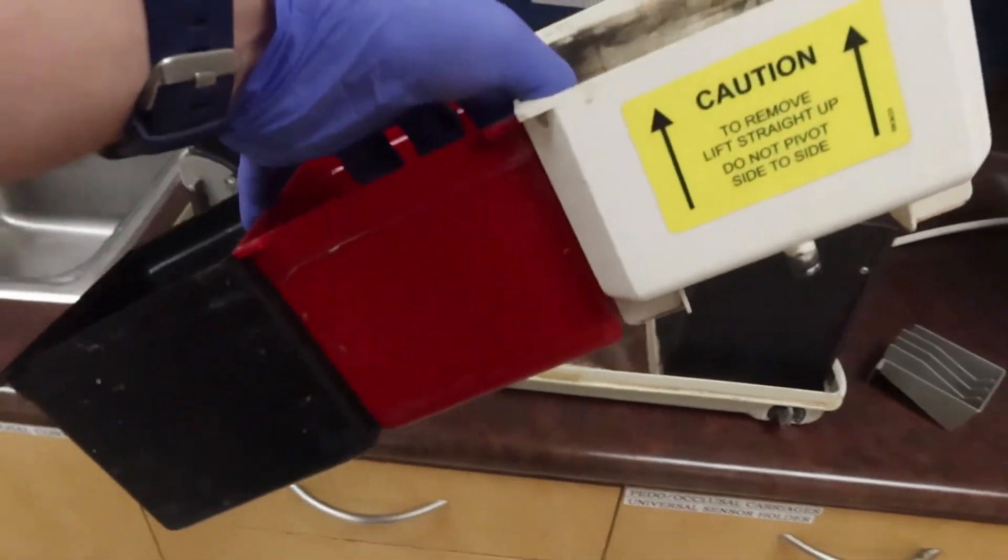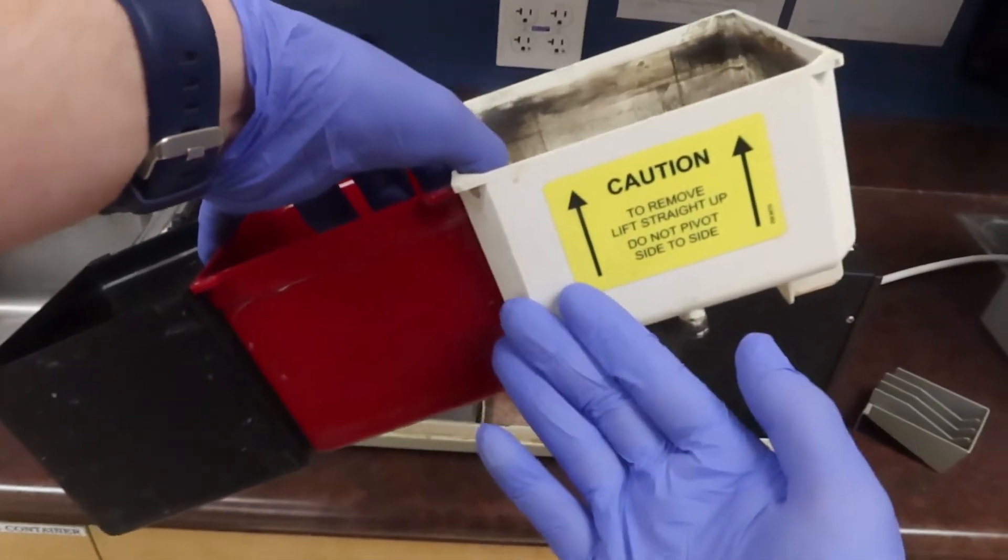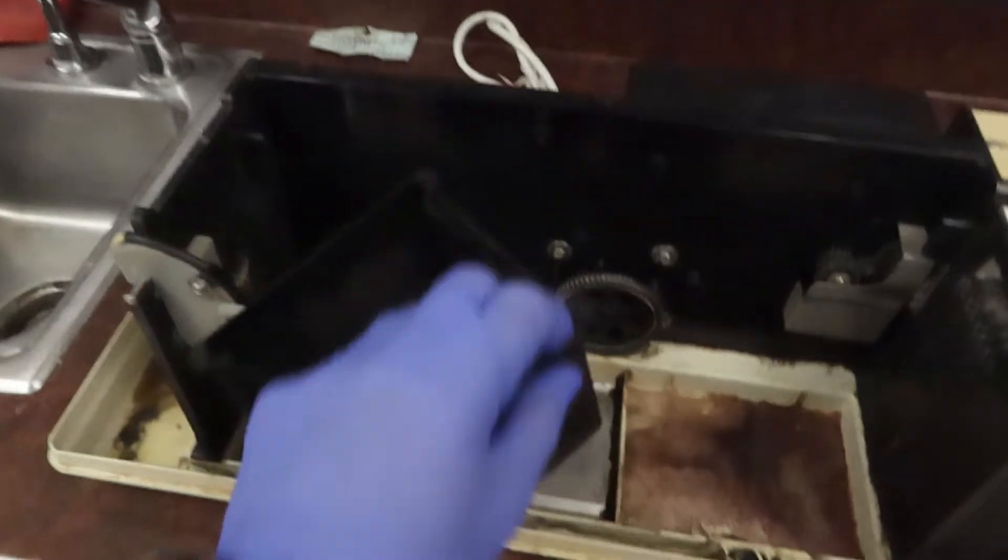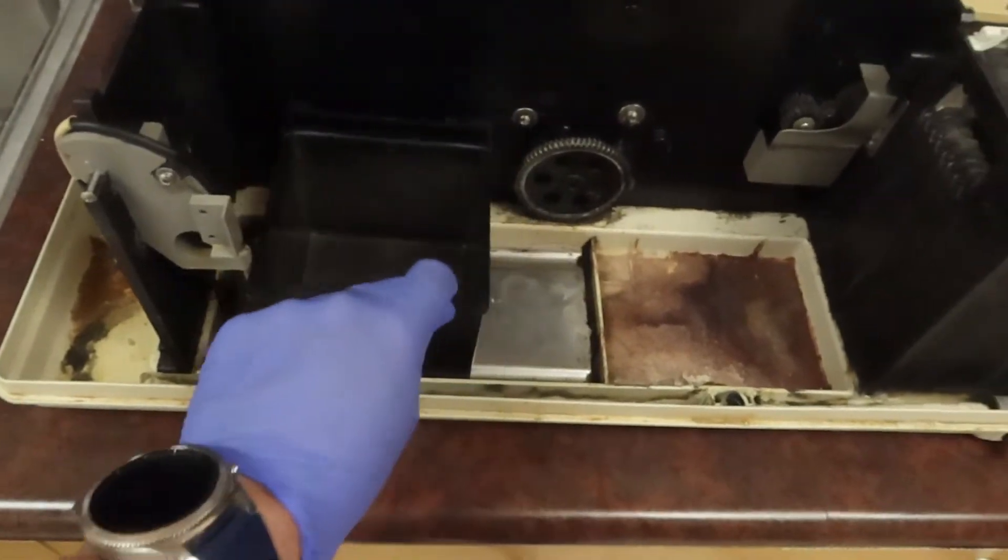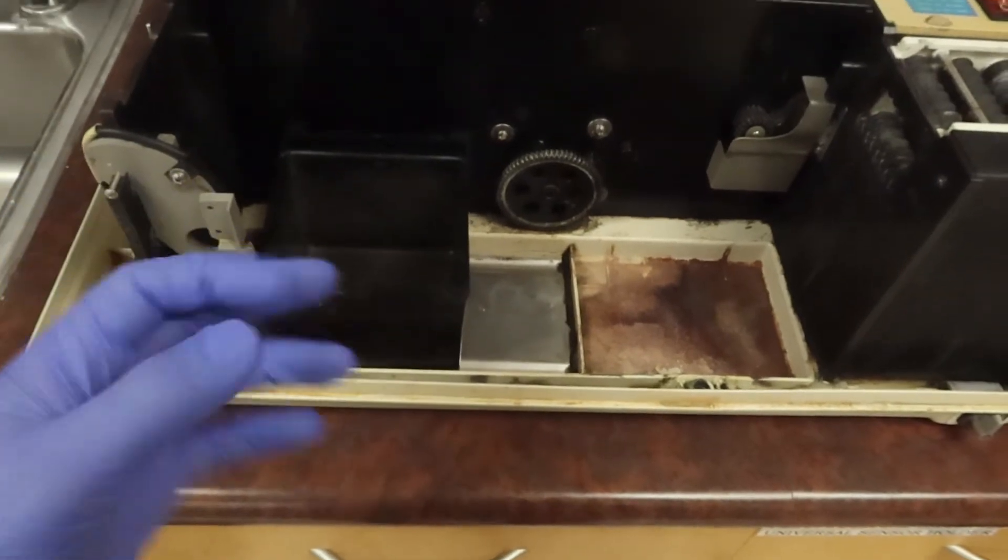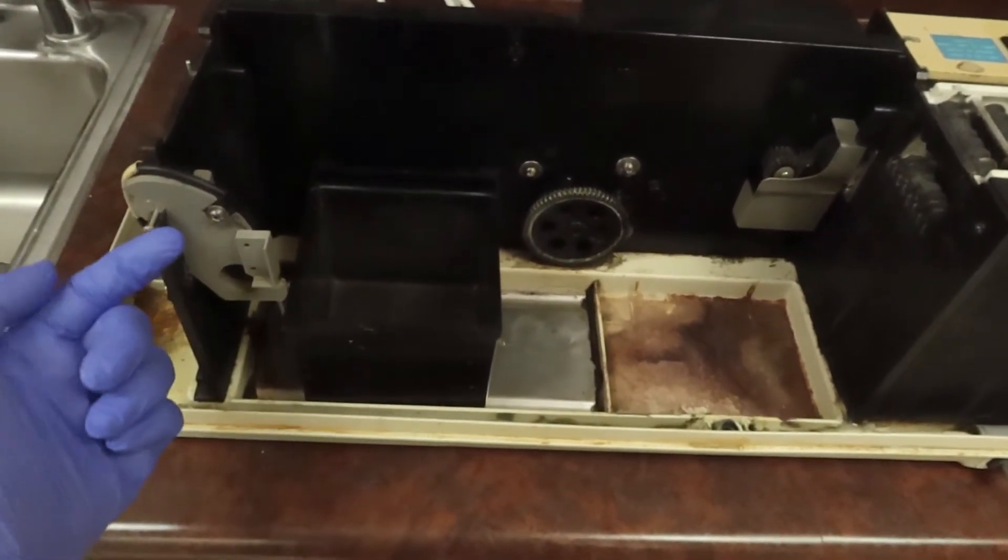It's usually going to be black at the beginning, but because I can't push it all the way to the left, the issue is that there's a thermometer right here that must be inside that bin.